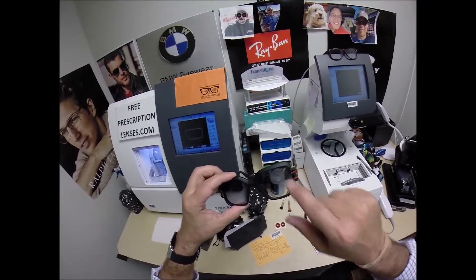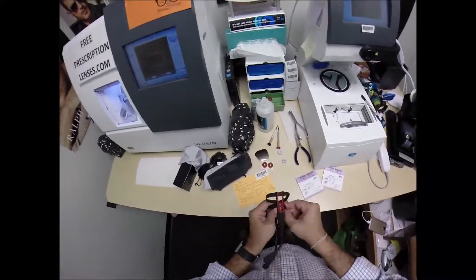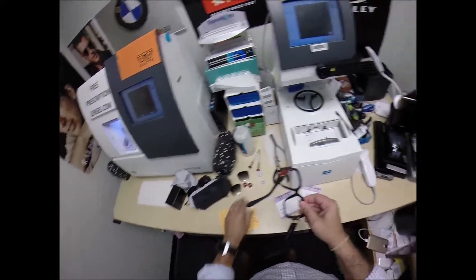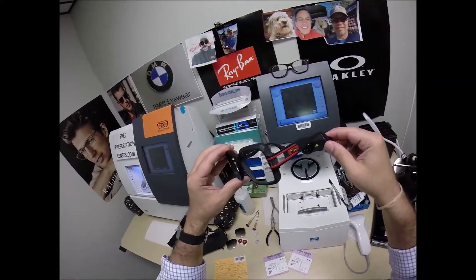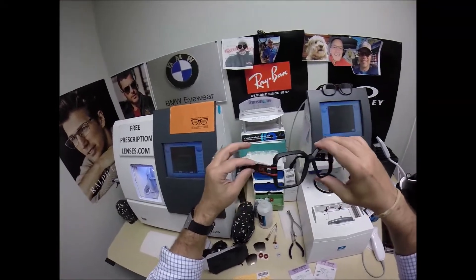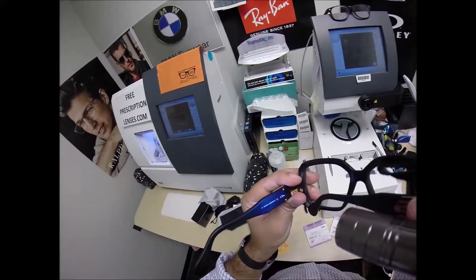I'm going to pop out your original demo lens, one that says Cazal on it. You're going to get all the manufacturer's original packaging. I'm going to take your frame. By the way, beautiful frame. There are very few frames made as nice as these. And of course all the Cazals are made in Germany.